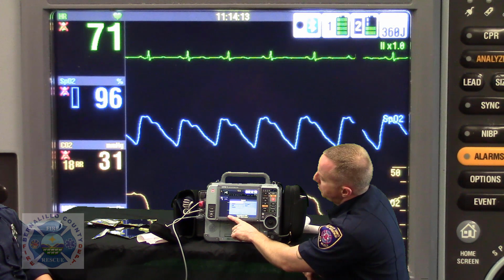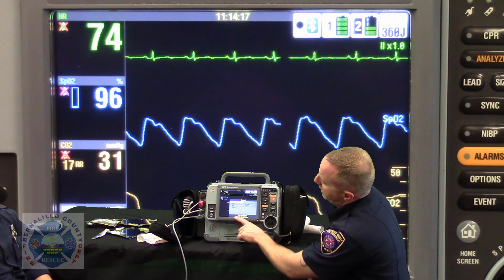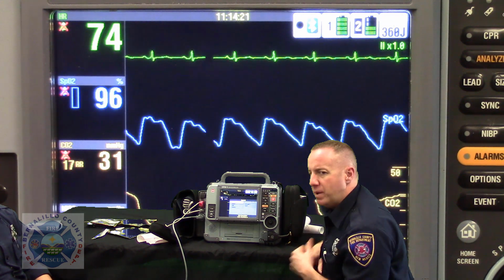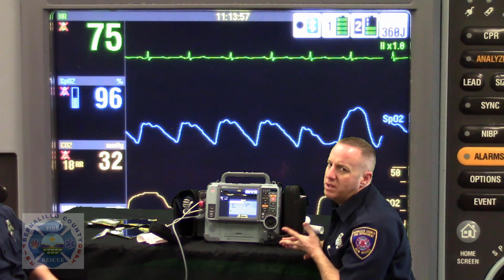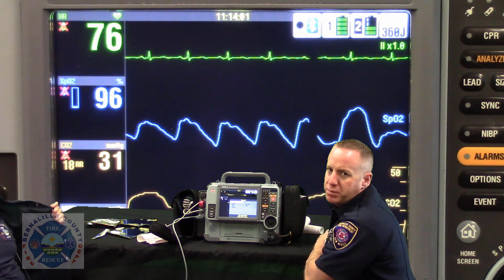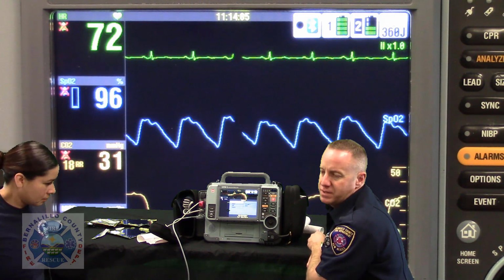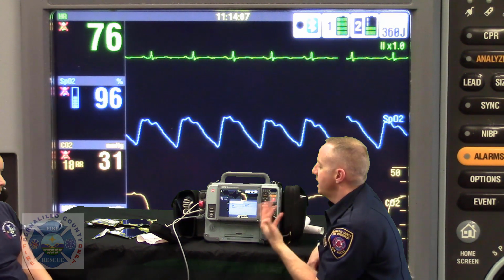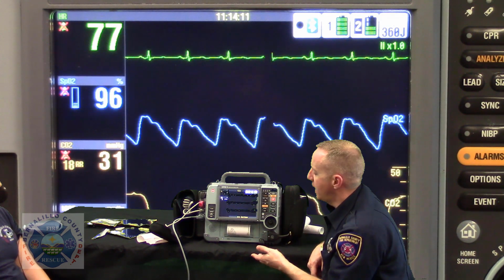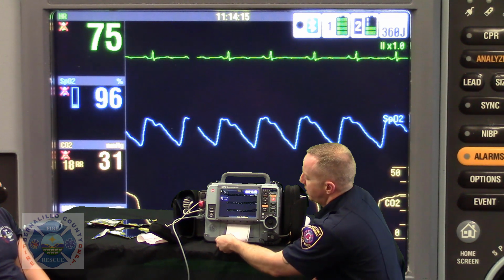Pay attention to what the monitor is telling you. It says attempting to transmit, transmitting, and now it's counting up in a percentage as to how much is transmitted. When I've been on the phone with the hospital and I've called all of them, sending them test EKGs, when this thing hits 99% transmitted, the EKG is printing on the printer at the facility. So you don't necessarily have to wait for 100%. As soon as you see it's hit 99%, the EKG is printing somewhere, and somebody's going to be grabbing that.